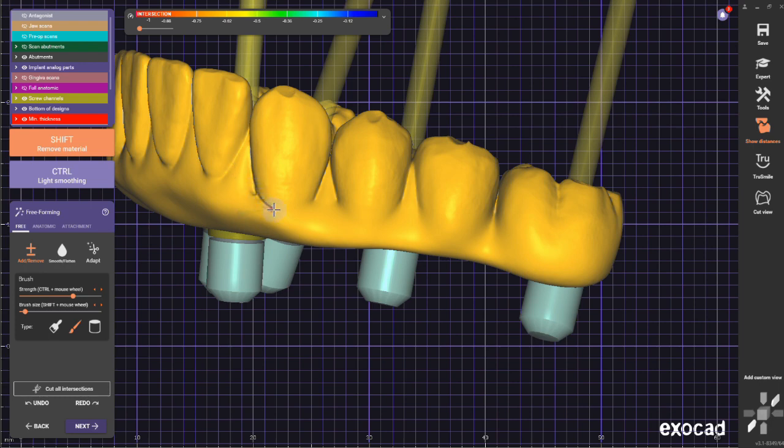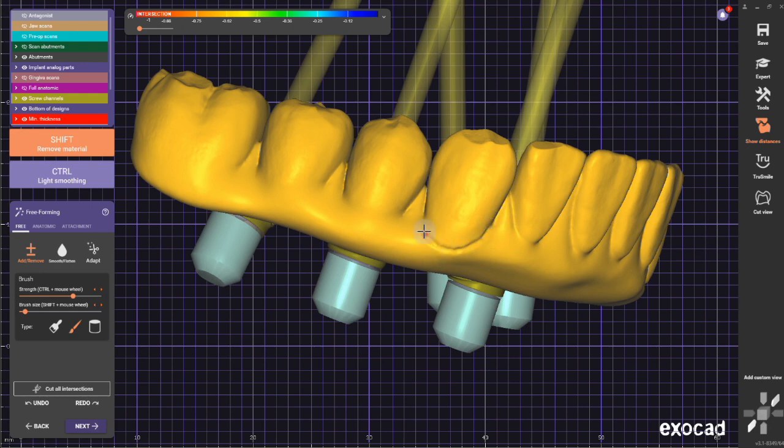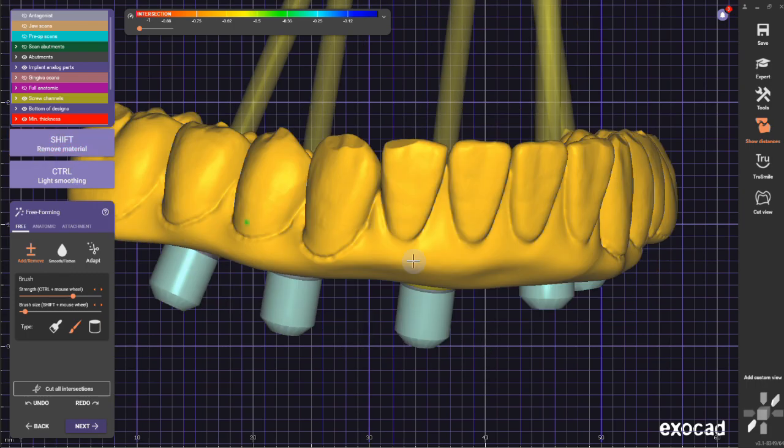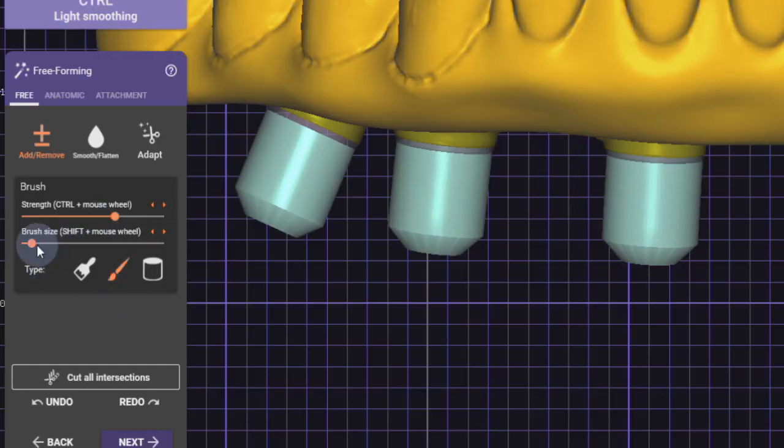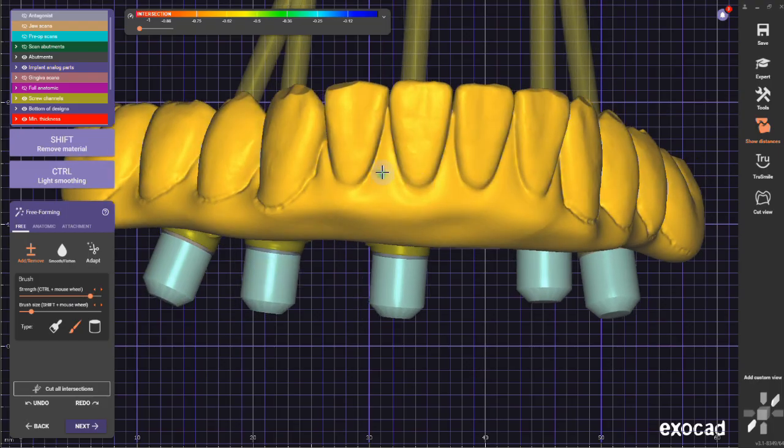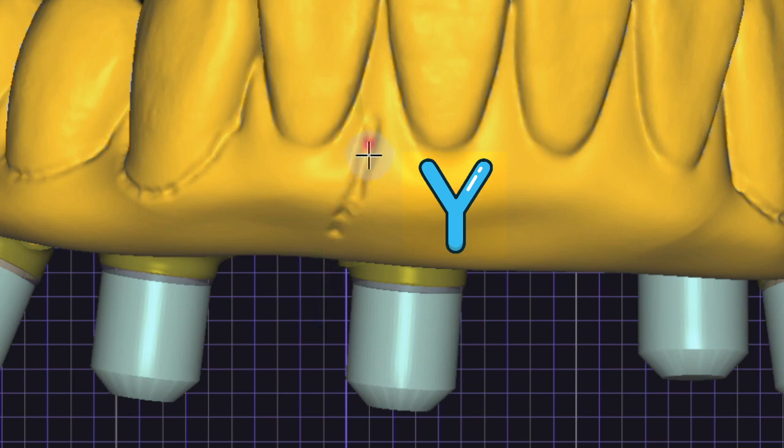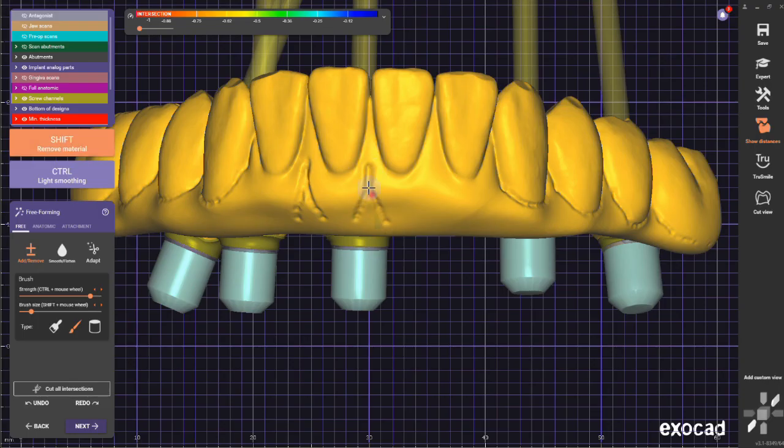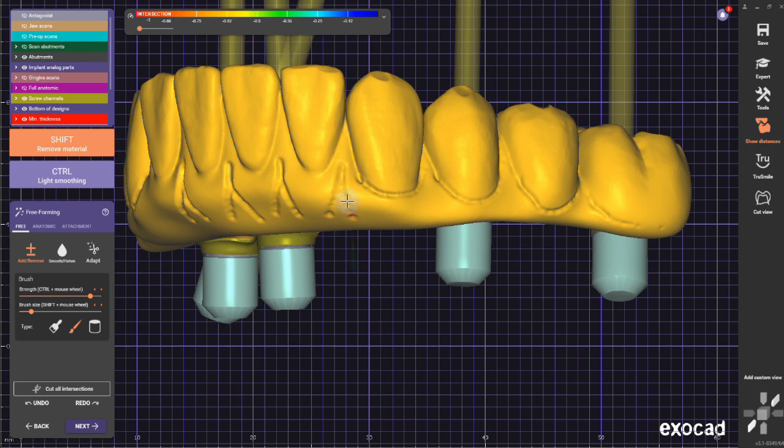A little trick I use is creating an upside-down Y to create the root between the teeth. I'm going to do this Y in between every tooth. After I'm done carving it in, I'm going to go to the bigger tool and smooth it out. This gives me a good root shape.